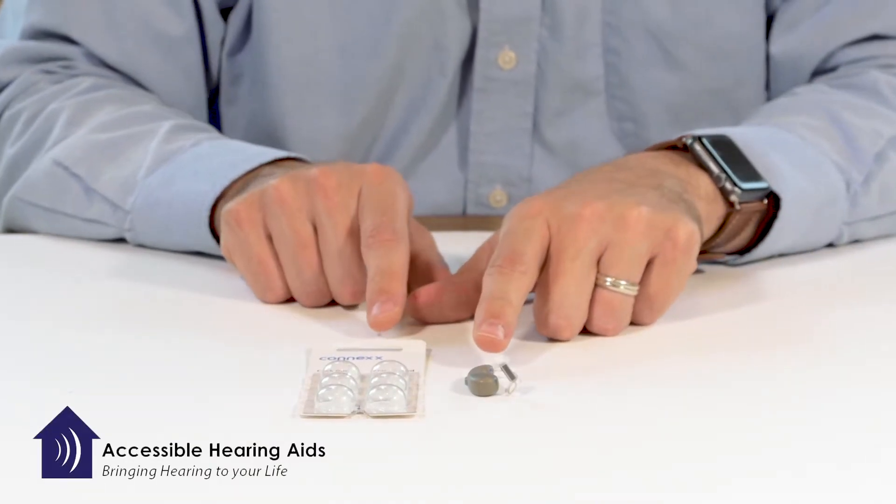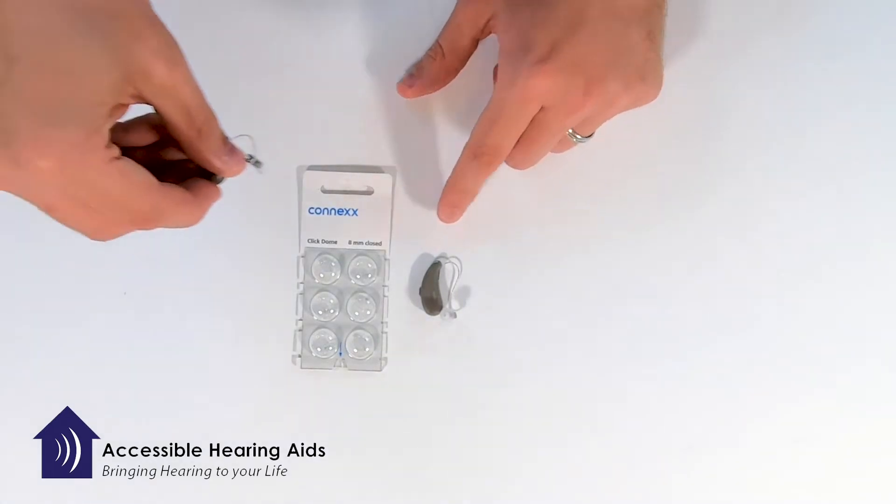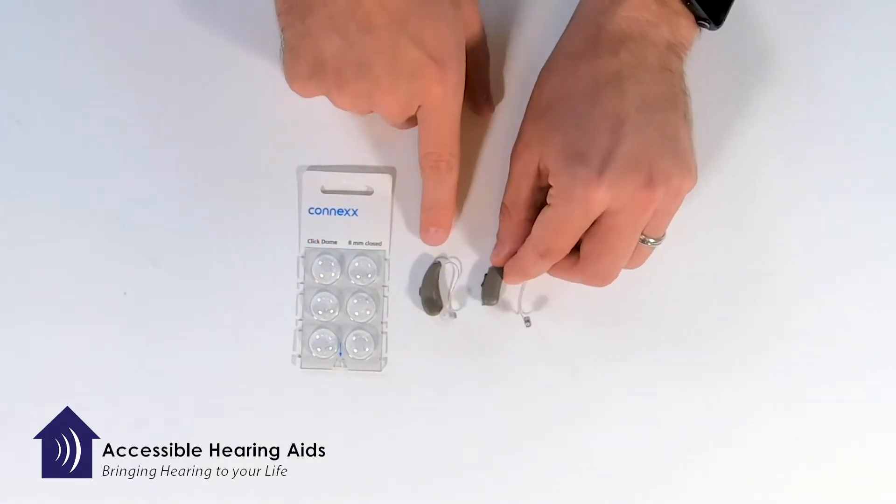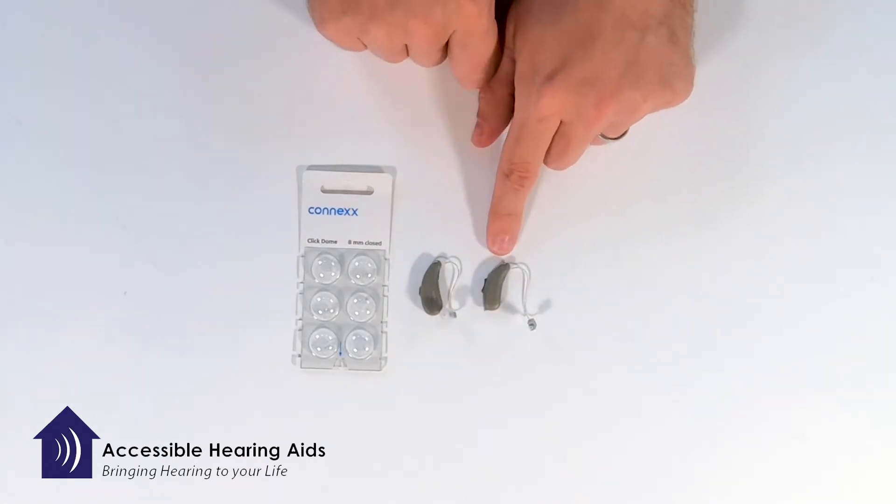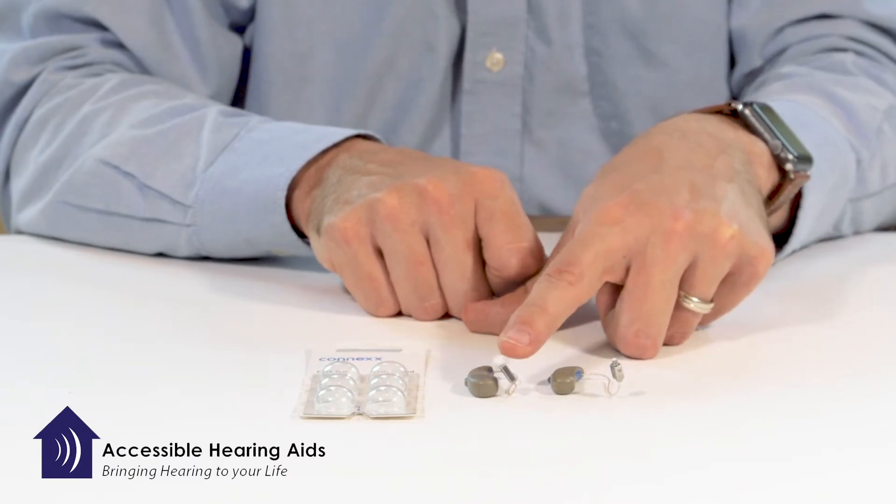I wanted to show you today this Signia receiver-in-the-ear hearing device. You can use this style or this style - this is the rechargeable and this is battery operated, but both are receiver-in-the-ear. This one looks a little different because it no longer has the cone tip on the end.